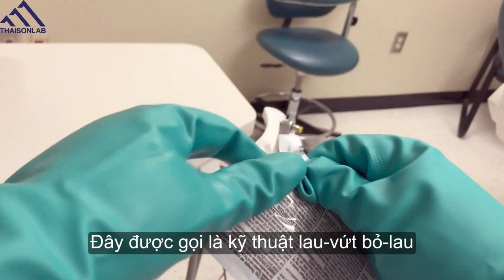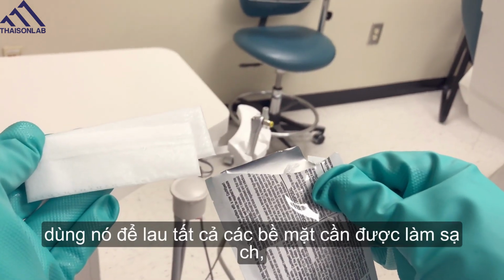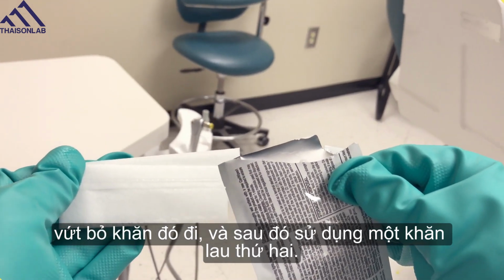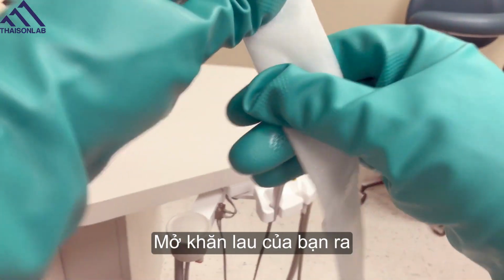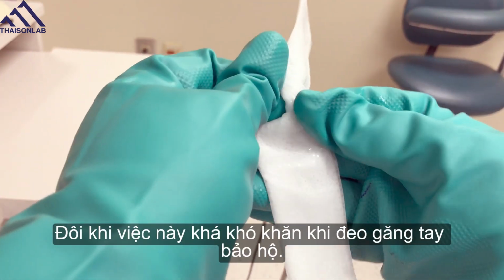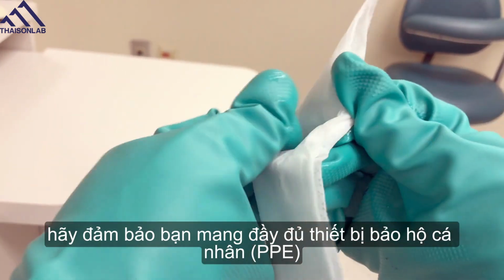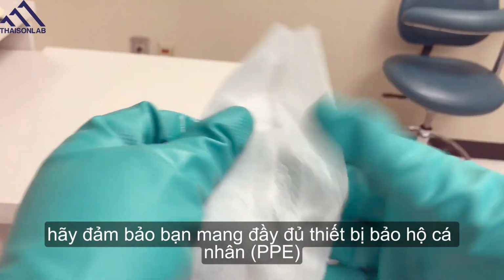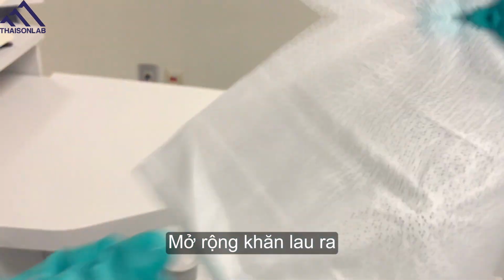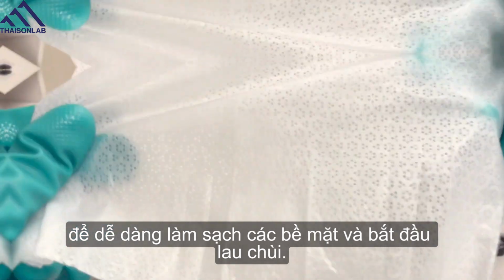This is called the wipe, discard, wipe technique because we take one wipe, wipe all of our surfaces that need to be cleaned, throw it out, and then use a second wipe. Open up your towelette. Sometimes that's challenging with these utility gloves. As with any cleaning procedure, make sure you are wearing all of your PPE as well as these utility gloves. Open up your towelette, which makes it easier to clean your surfaces, and start wiping.